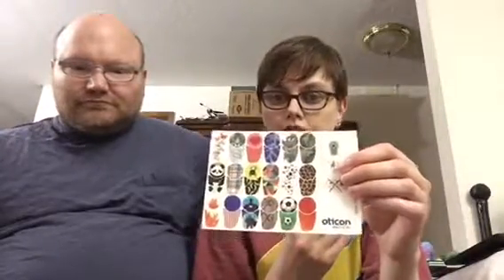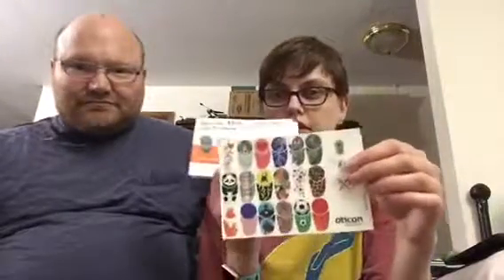This is the warranty. And then these - you can put stickers on your processor - which I think is kind of weird. I want it kind of hidden, not that I'm ashamed of not being able to hear, but it's not something I'd put stickers on, especially for the cost of the unit. I don't want a sticker that might accidentally ruin something. They're not cheap.